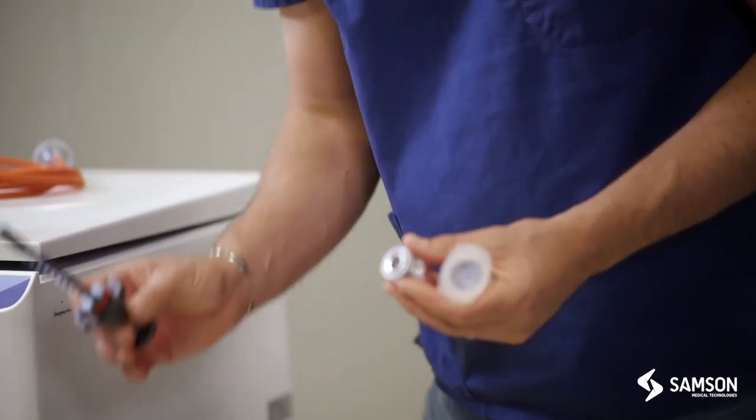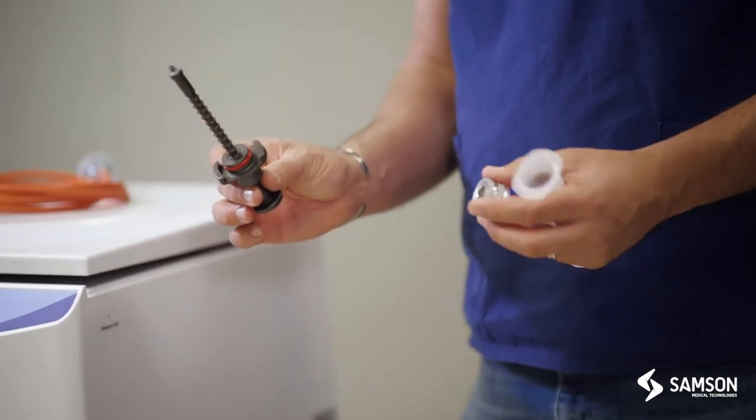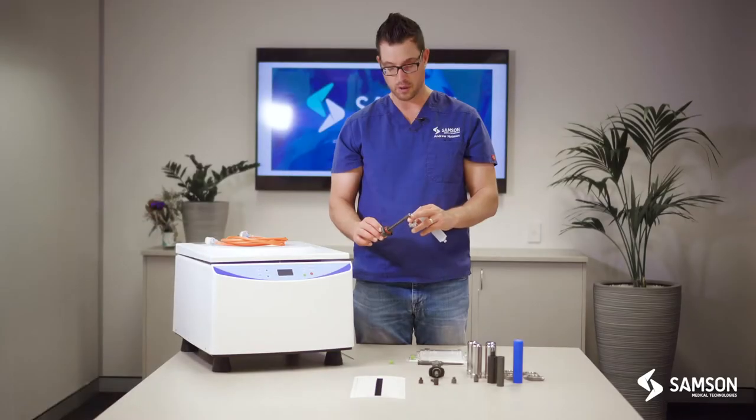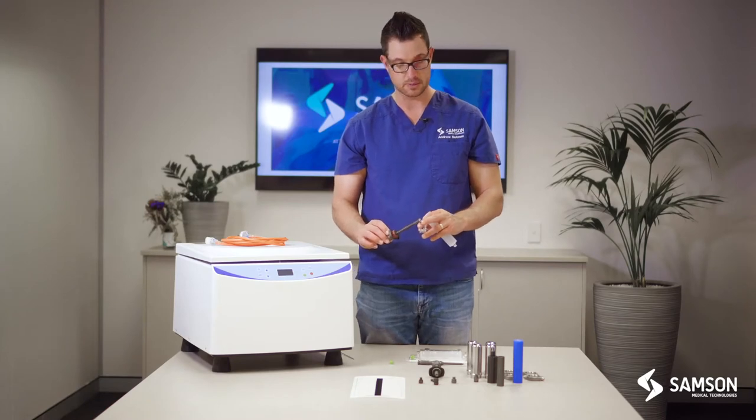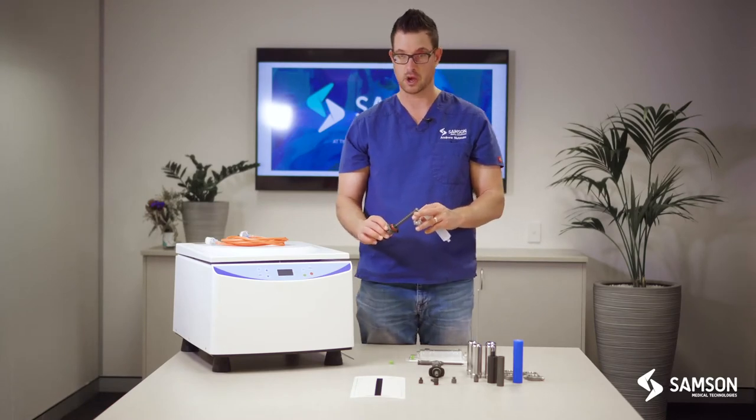We will connect our Torralock device. Please make sure that the little washer on the Torralock is still connected. Sometimes it does get misplaced once it goes through sterilization.